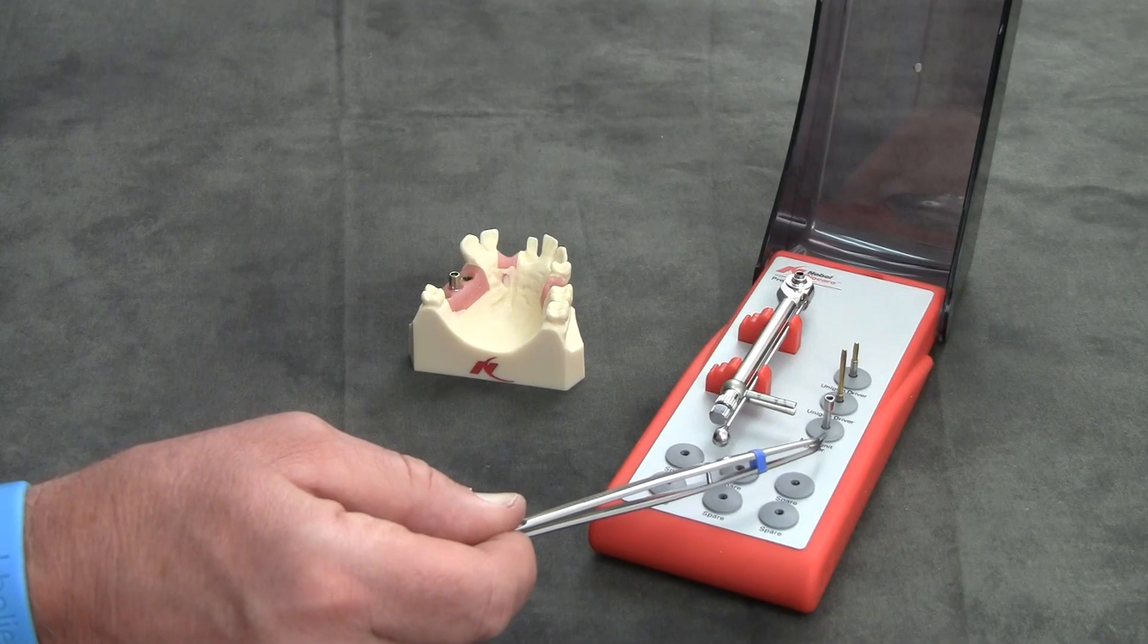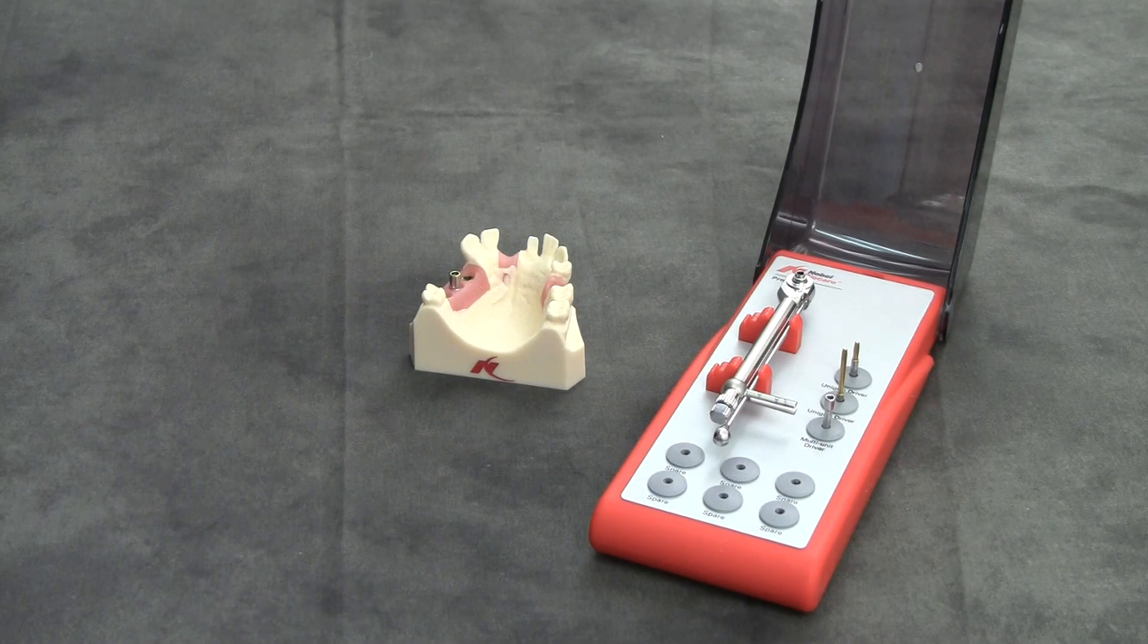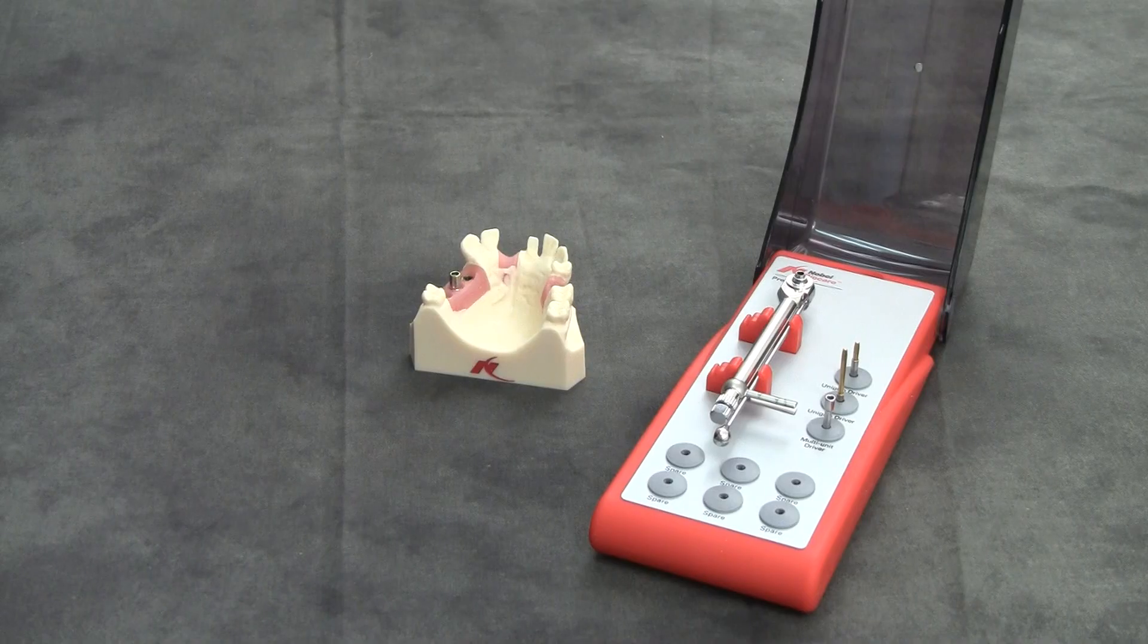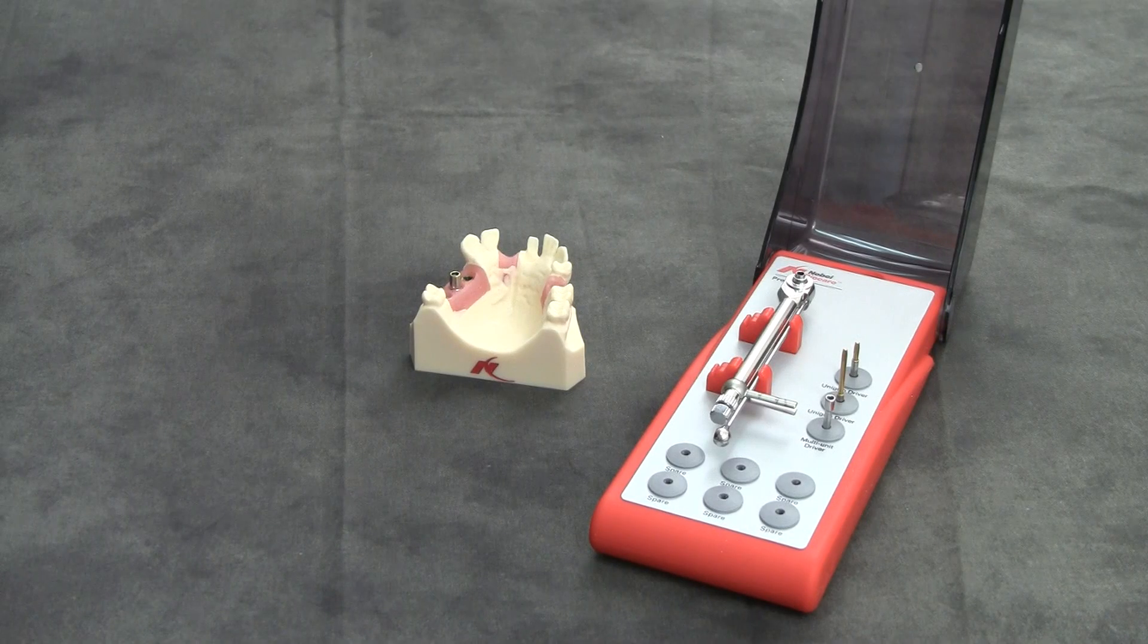The multi-unit driver can be used for a straight multi-unit abutment and also to tighten the immediate temporary abutment for a single tooth restoration.